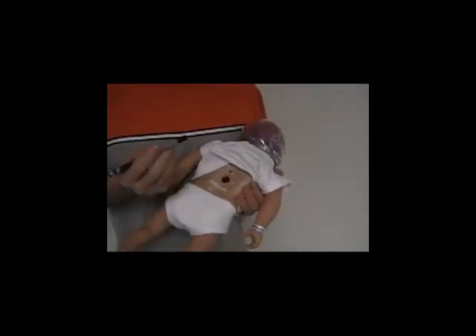This is activating the Shaken Baby Simulator using a pen. Press the red button at the center until an audible click is heard, and then the light should flash on the head.